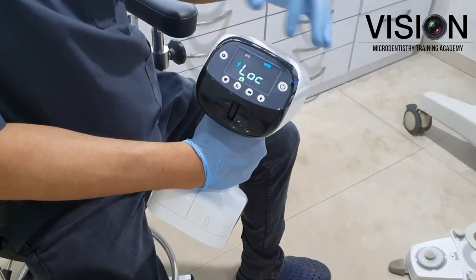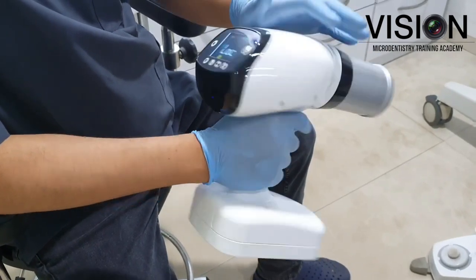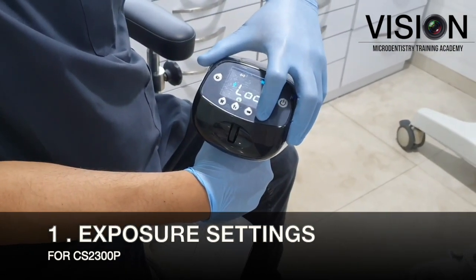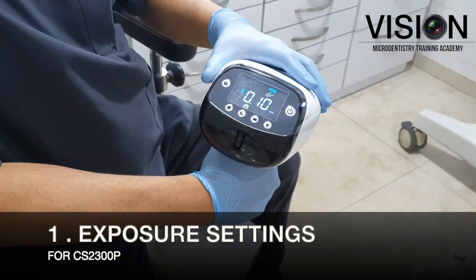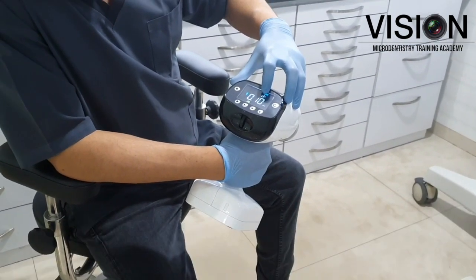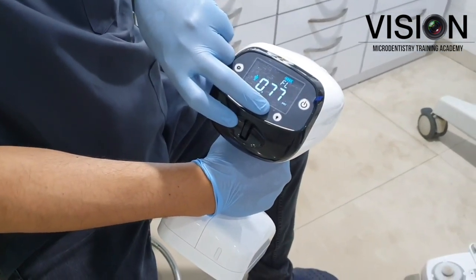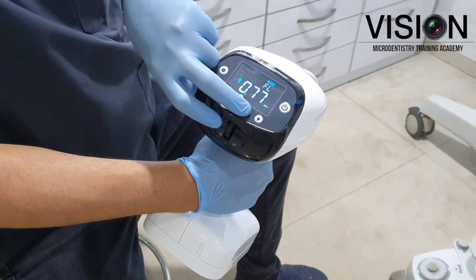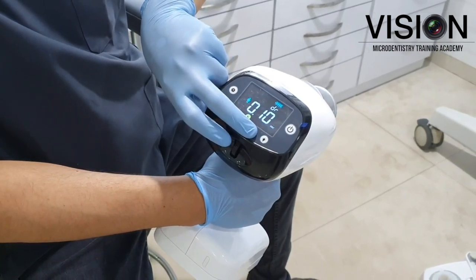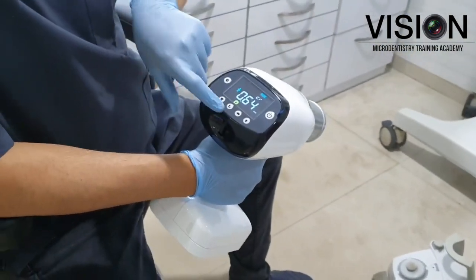When I switch on this device, you will see a lock on the display. This means that when the device switches on, it's in a locked mode and we cannot take radiographs with it. I press on this light button and now the device is enabled to take radiographs. You can also see the battery indicator and a reading that says DR. When I press on this, it will change to CR and FL. These stand for film, phosphor plates, and digital radiography respectively. DR denotes digital radiography or RVG, CR denotes phosphor plates, and FL denotes film.